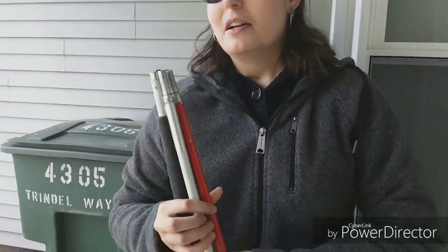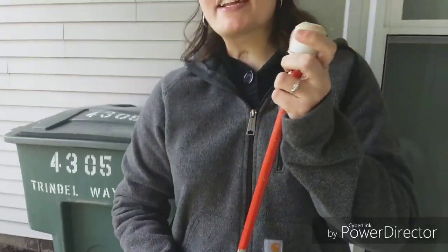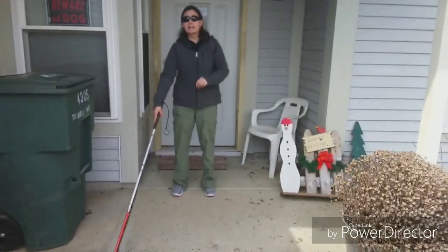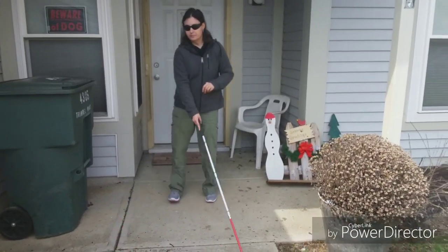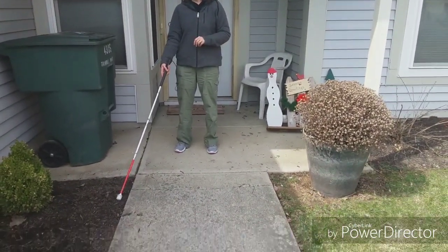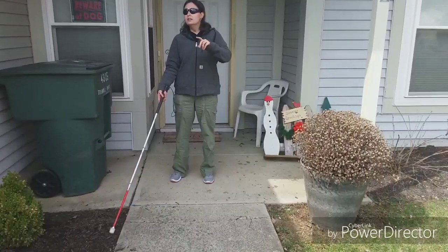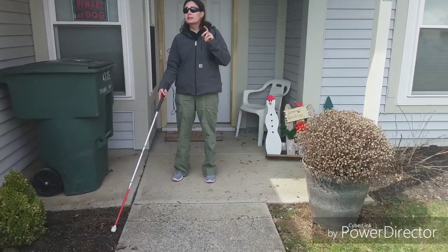To walk on Hobby's arm or someone else's arm than using my white cane. So, show them the roller tip — this is different, right? My white cane is a fold-out cane and you can tell my roller tip rolls on the sidewalk. I'll show you how you're supposed to use it. So this is how you're supposed to use a rolling tip.